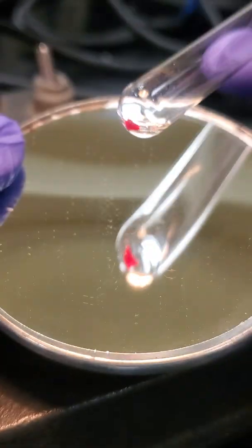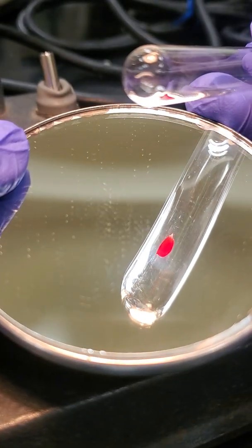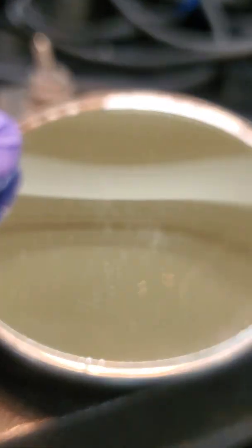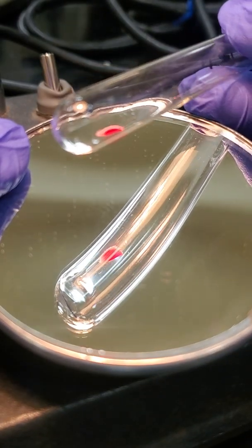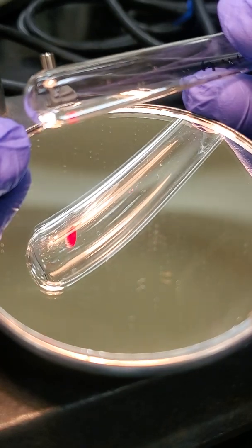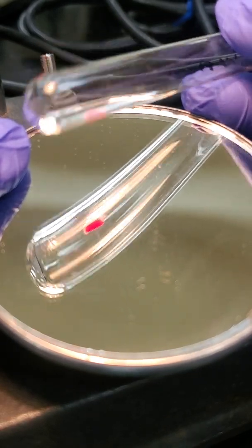And this is our D tube of unknown number 2. This is our reverse grouping. So our A cell and our B cell.